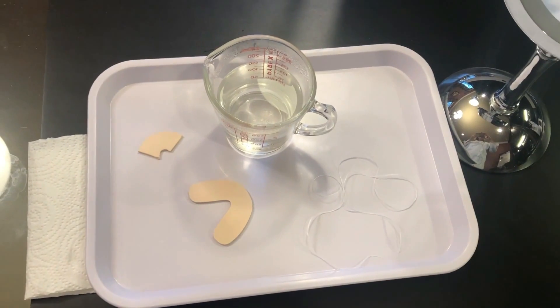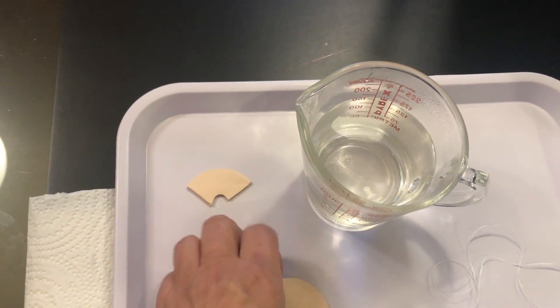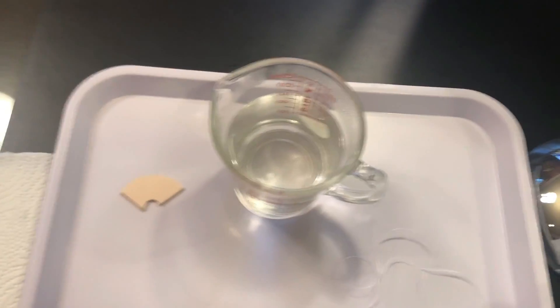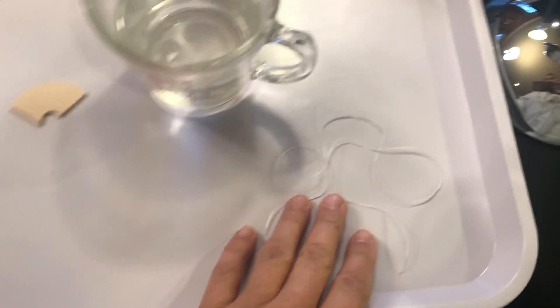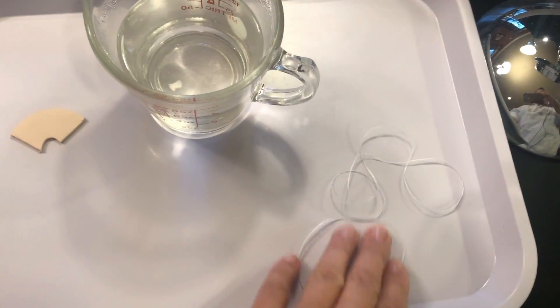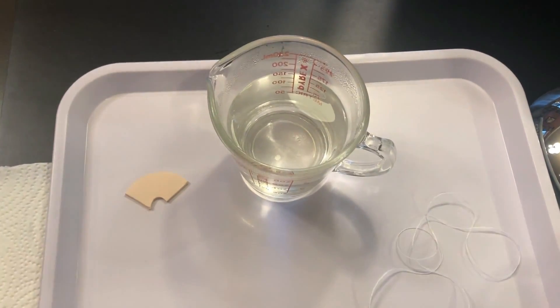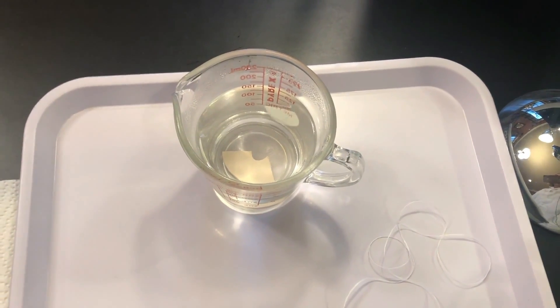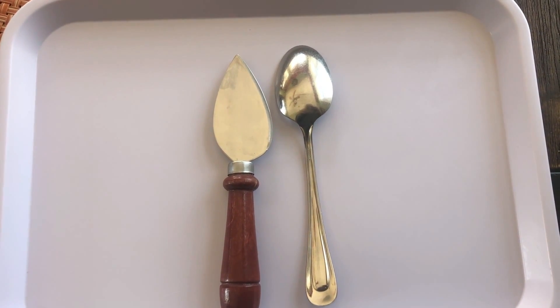So this is what you will need today. You can do this at the bathroom sink area, so you'll want some kind of mirror. You will have received a piece like this from your dentist — it might be a slightly different shape, because very often they'll cut it into one third since you only need part of it. You'll also need very hot water — too hot to put your hand in; I microwaved mine for about a minute to a minute and a half. You'll need a longer piece of floss, which I'll demonstrate shortly. Make sure your hands are clean, then insert the piece into the cup of hot water and let it warm up for about a minute to a minute and a half. You'll also need a spoon or spatula to remove the piece from the hot water.